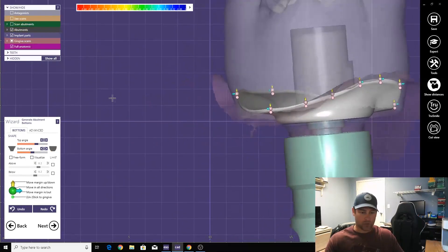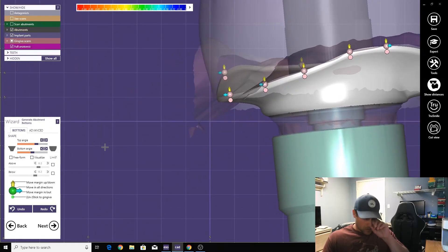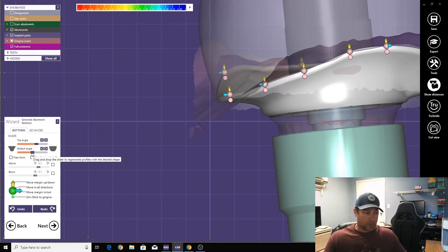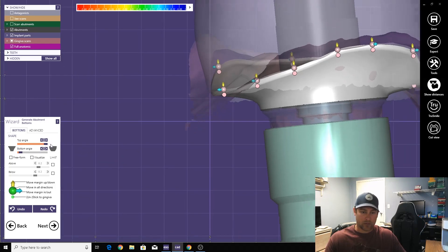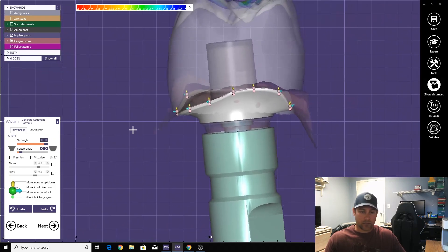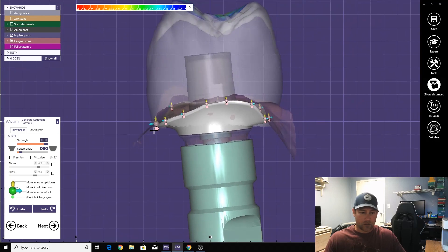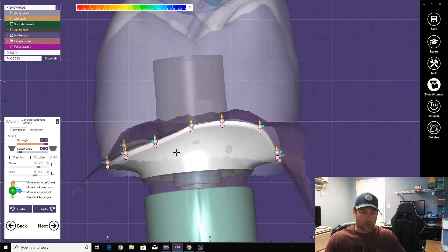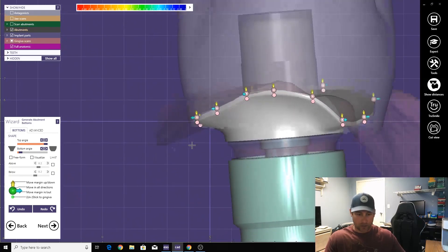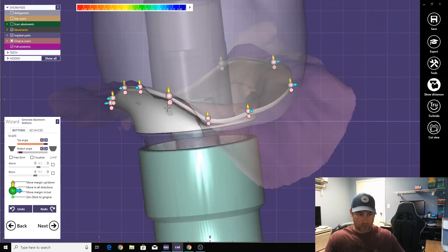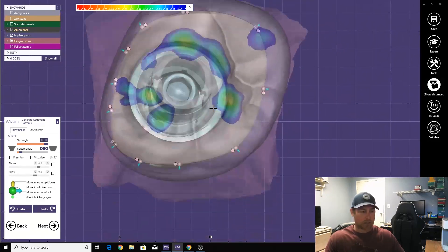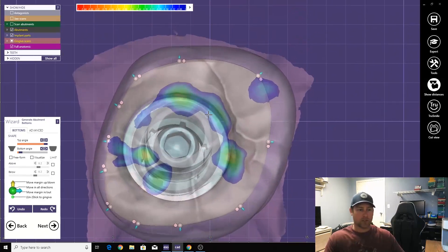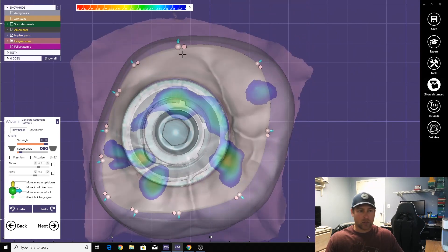Okay, now we're going to angle this. Bottom angle first, then the top angle. Okay. Now you see we want a nice even smooth flow. We don't want all these jerky movements. So what I like to do is hold down the control, yeah control, click on the pink button.